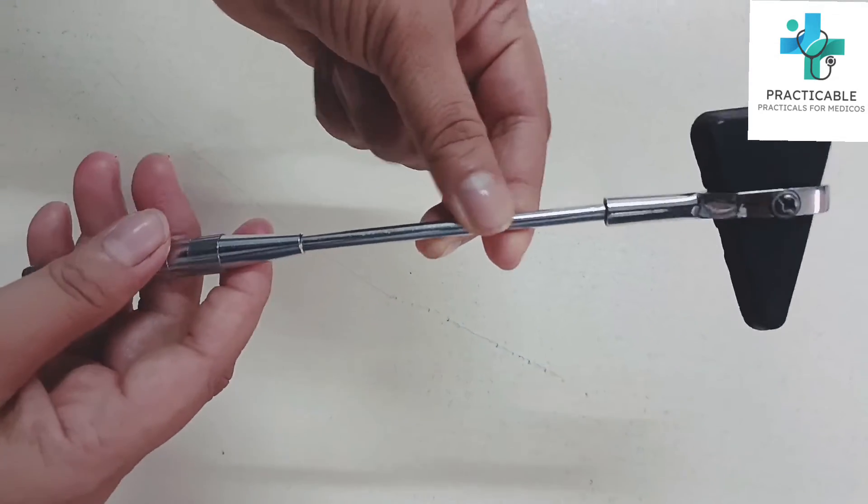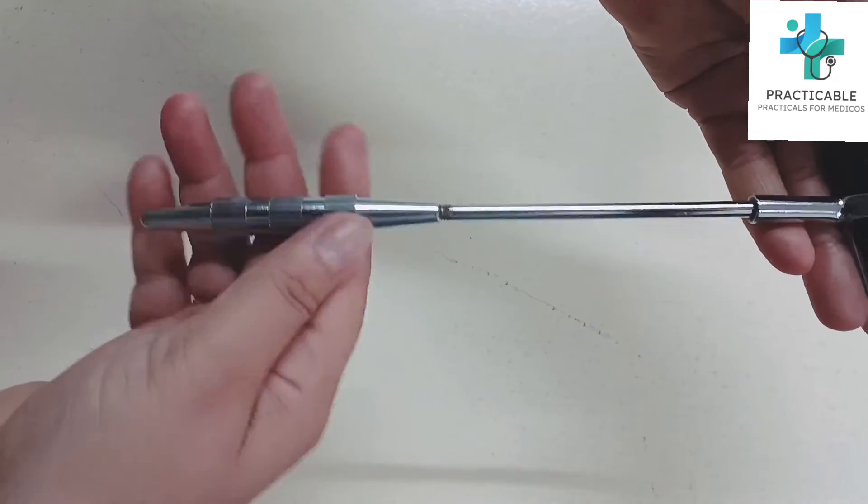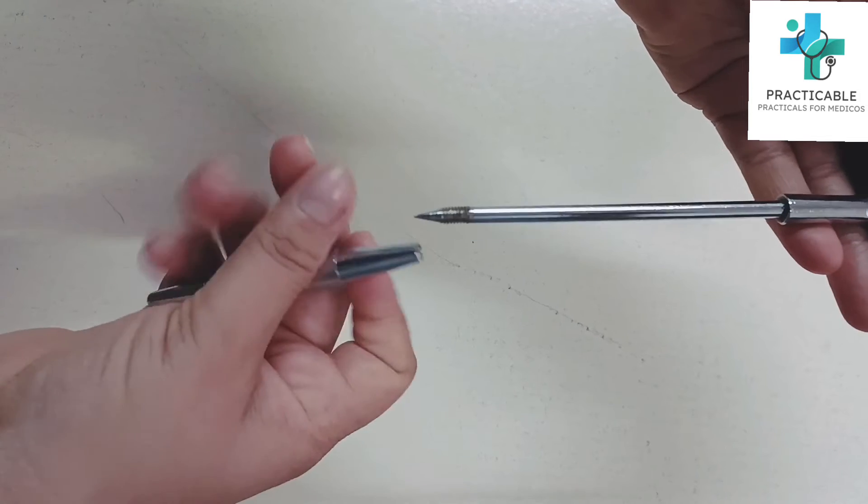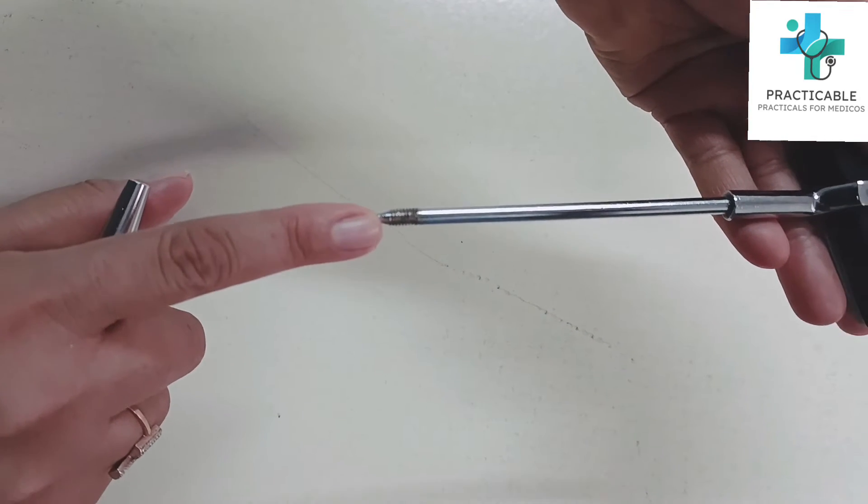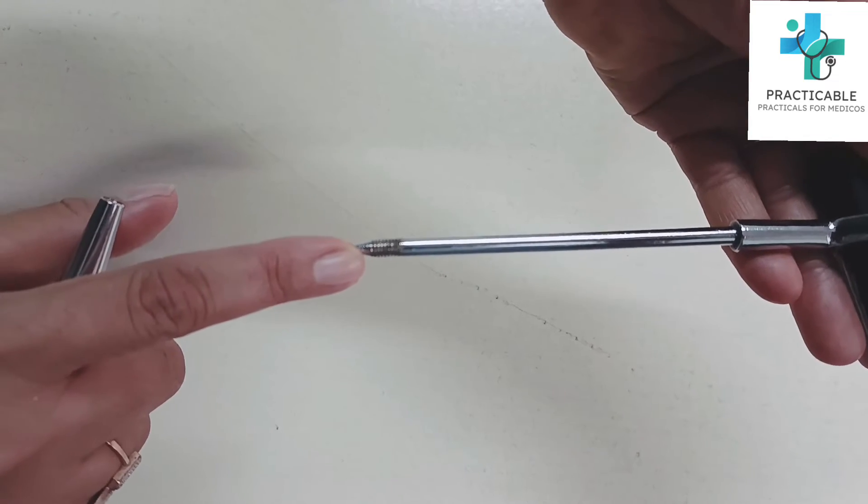Then there is a sharp pointer. See this. This sharp pointer is used to elicit superficial reflexes.